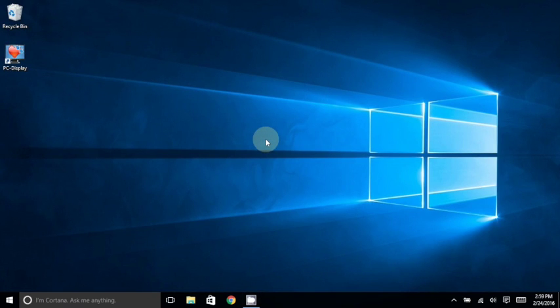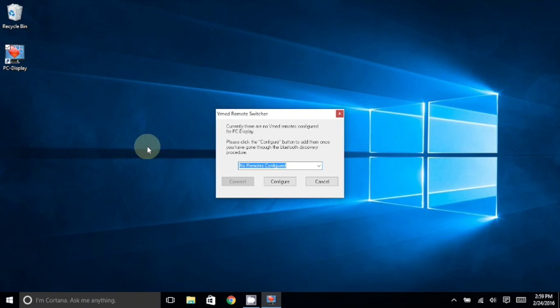Now once more, open PC Display. This time you'll see a smaller window titled VMED Remote Switcher. Click the Configure button.